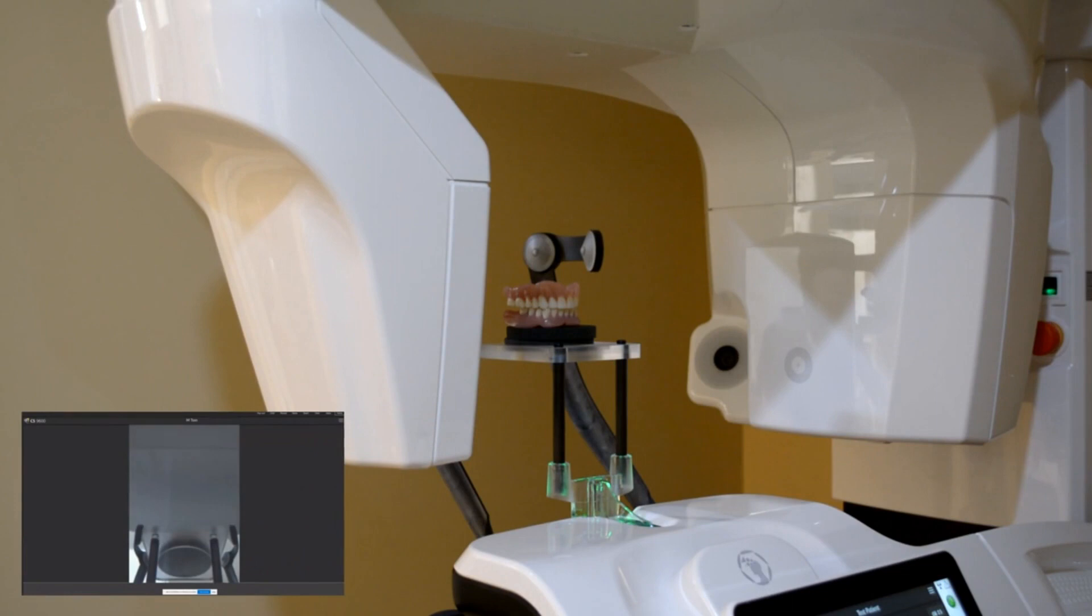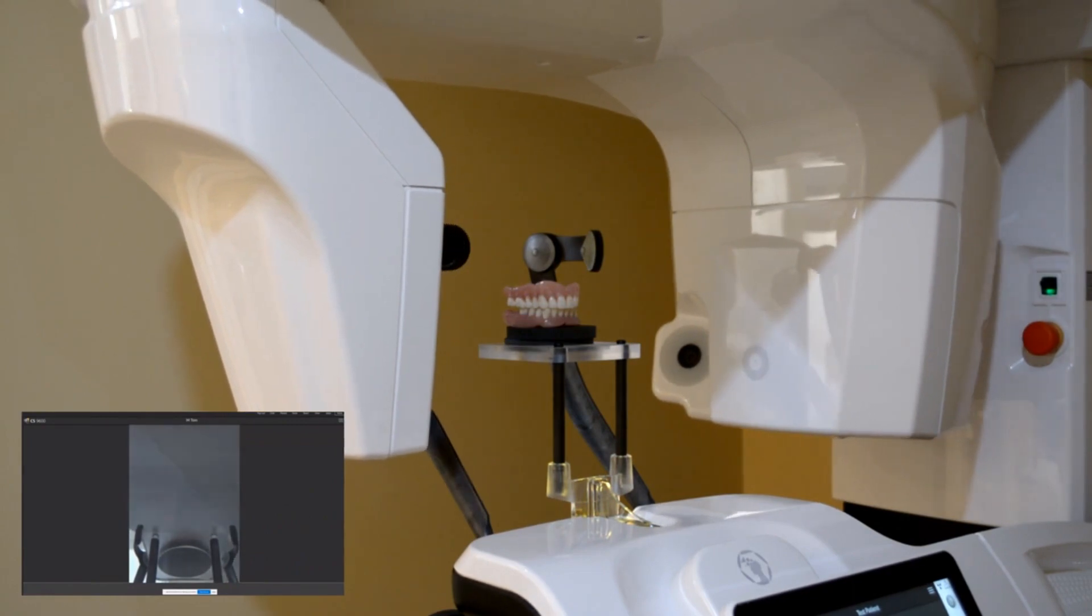Note that in North Carolina, it is mandatory to perform the scanning process behind a closed door. After you have closed the door, you can press the button to initialize the scan.